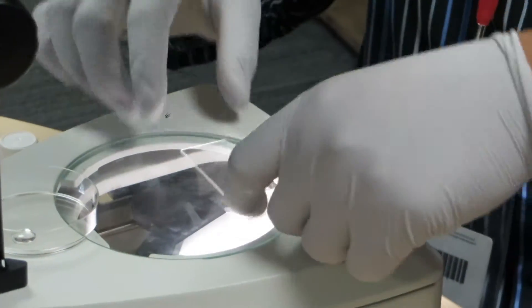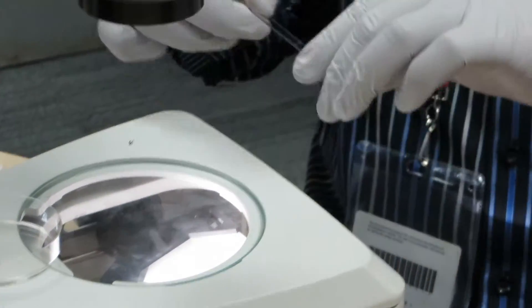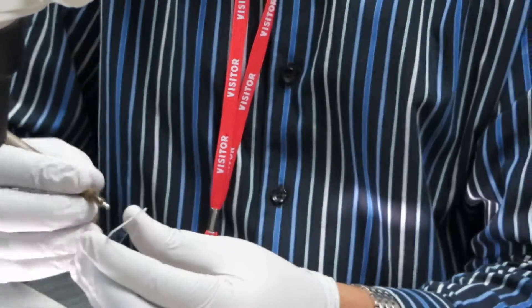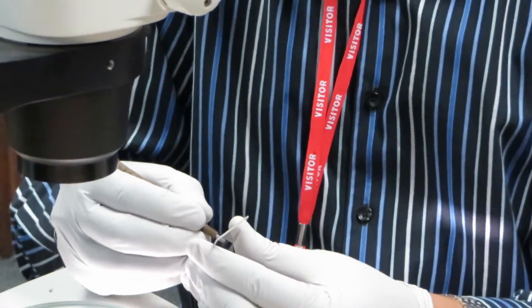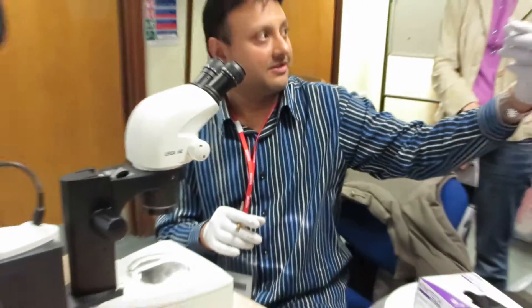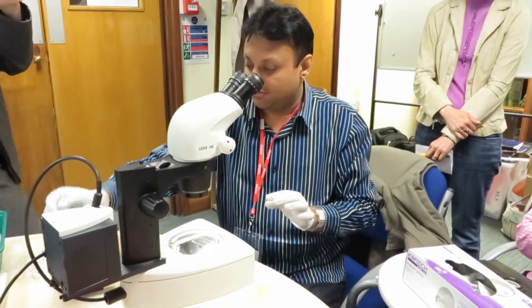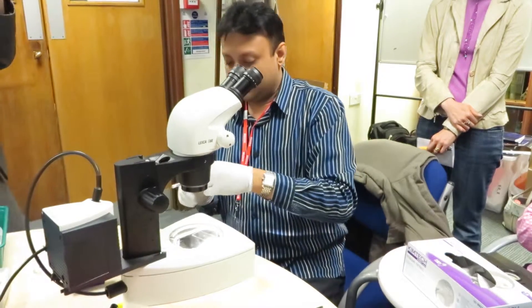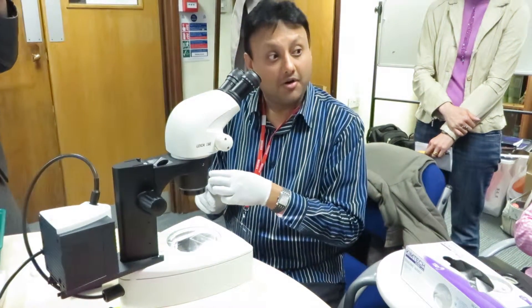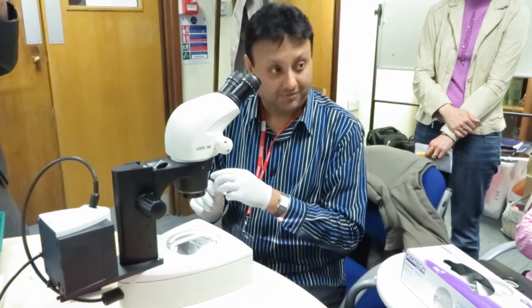Because we take two cells in our lab, we always put the two cells next to each other on the same slide. So you can see that the slide has got two circles there on the underside. First thing to do is put one slide per embryo.